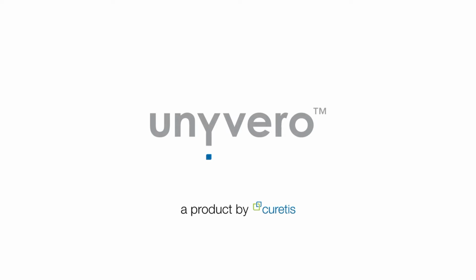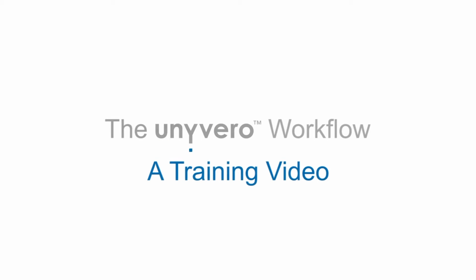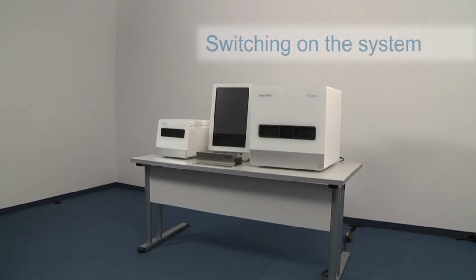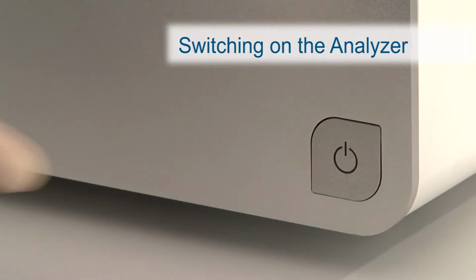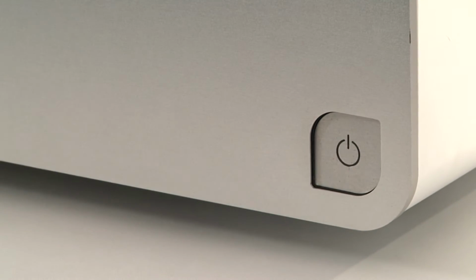The following training video will give you an overview of the operation of the Unyvero system and its ease of use. First, you will need to switch on the system. Power up the analyzer using the switch at the bottom right-hand corner on the front of the instrument.